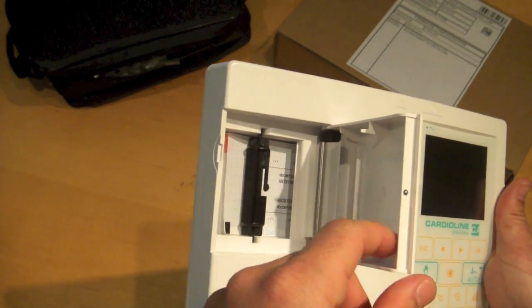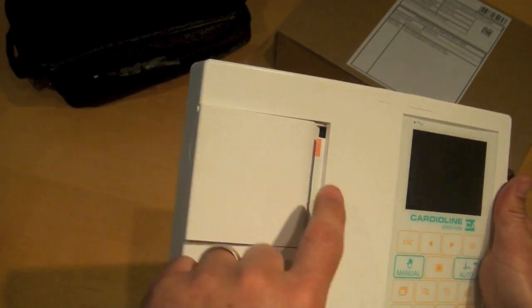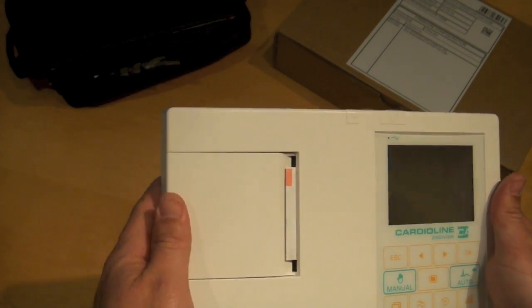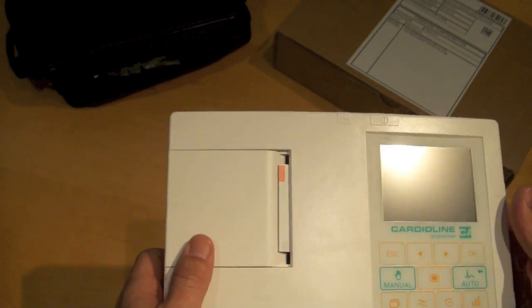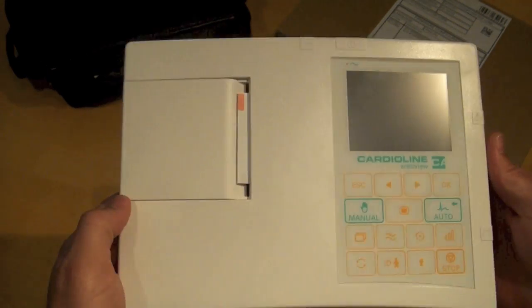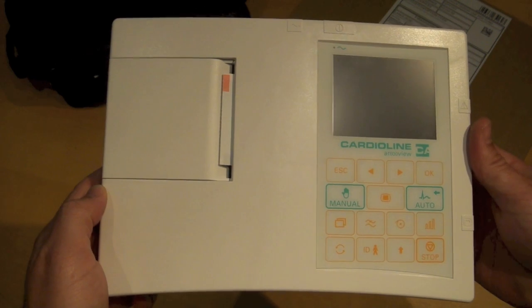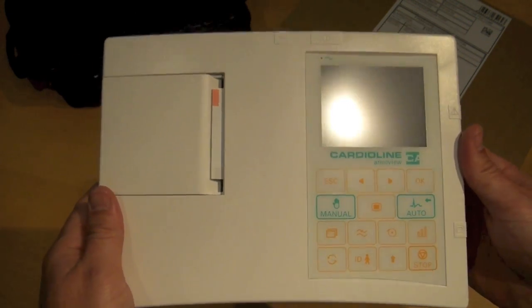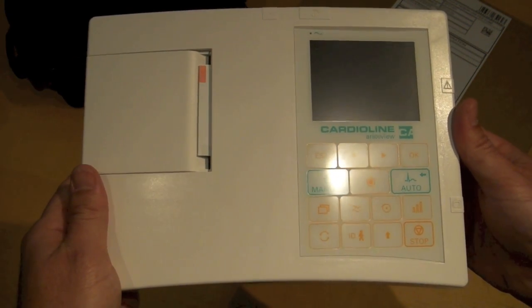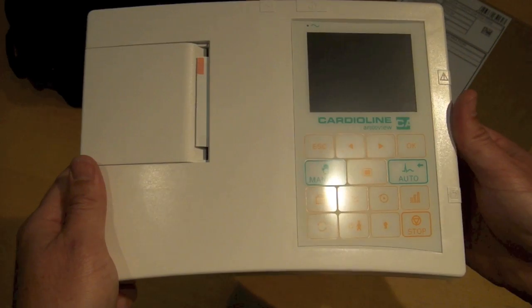Again, it does print on this small 3-lead strip paper, but you can plug it into a PC to allow it to upload a full-page report using the Cube software, which is included with the Bluetooth version of the product.